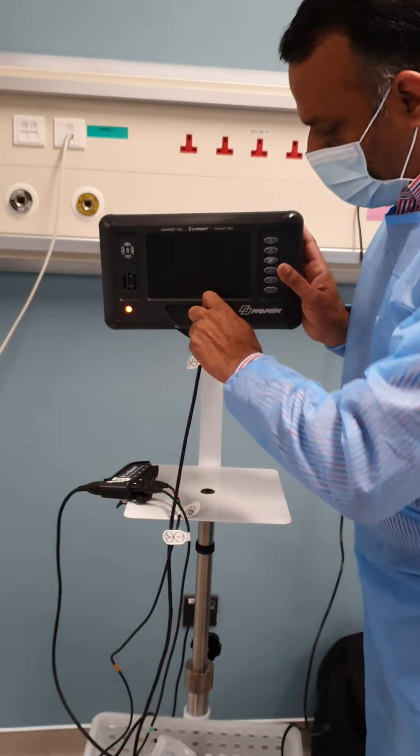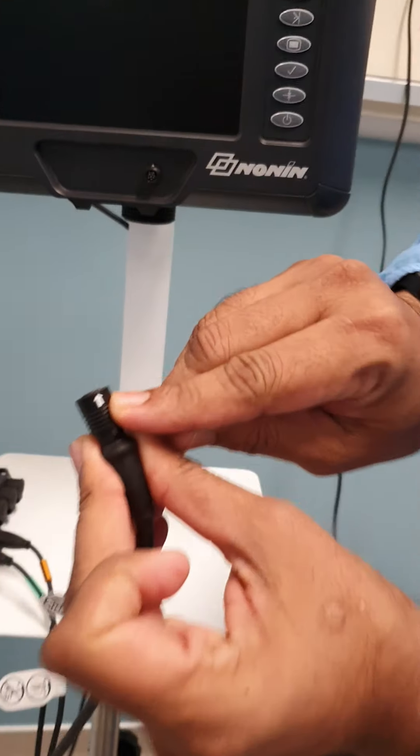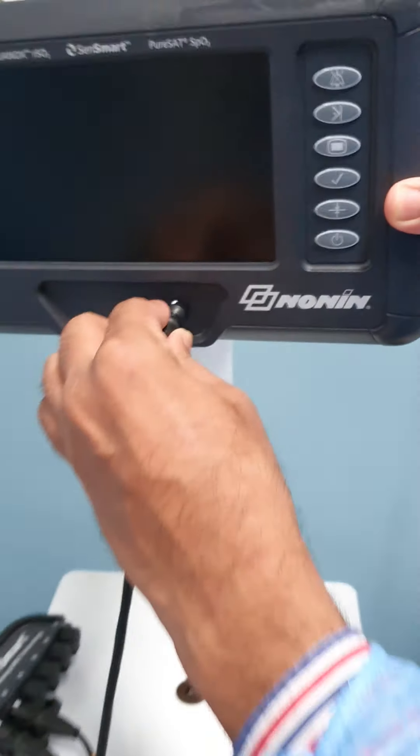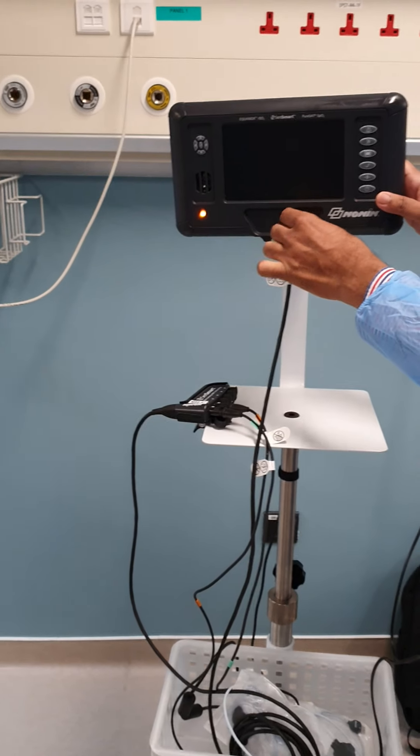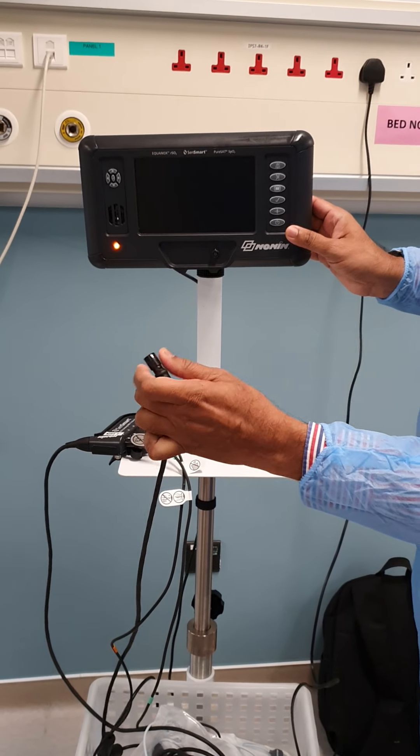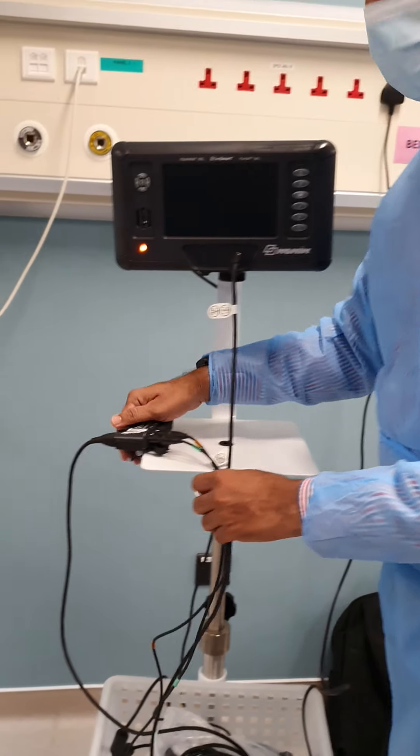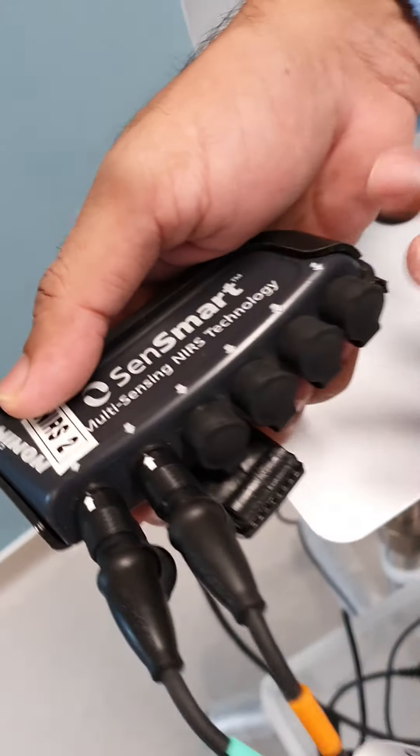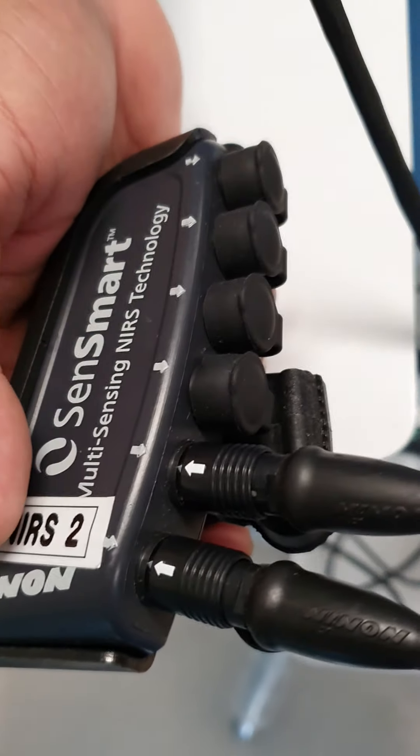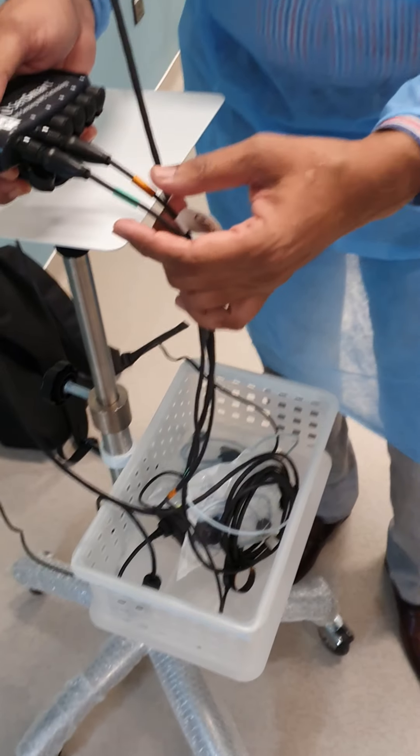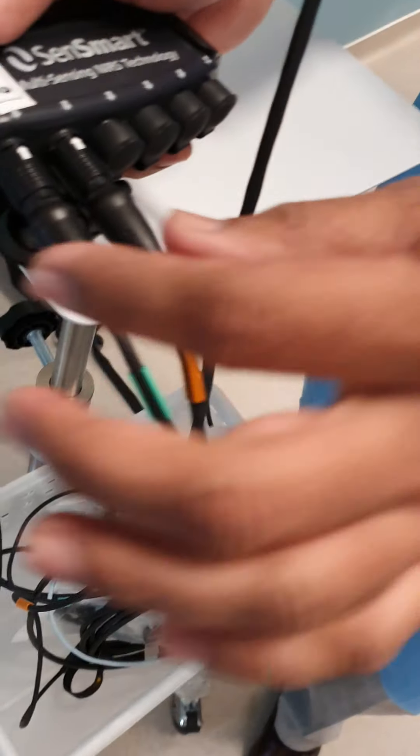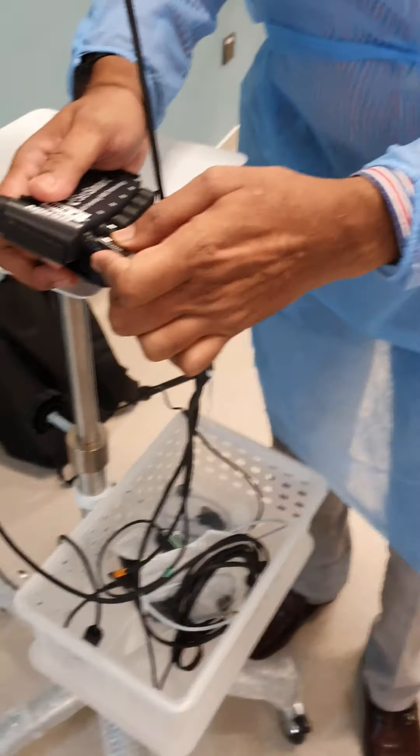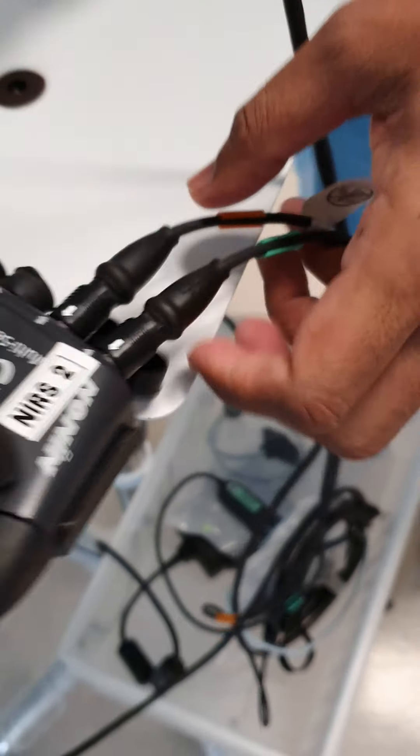Over here you can see there's a mark, and the same mark is there on the machine. We'll just do the marking to marking connection. You can see that I can just push it in. If you have to remove, there is a toggle like this. You just press it and remove it. Very simple connection. This is going to the hub where we are connecting. The hub has six channel connections and these channels can be switched anywhere. It's not compulsory that you have to fix anywhere. You see the color coding on the signal processors, and the connection is the same - white to white connection, arrow to arrow.